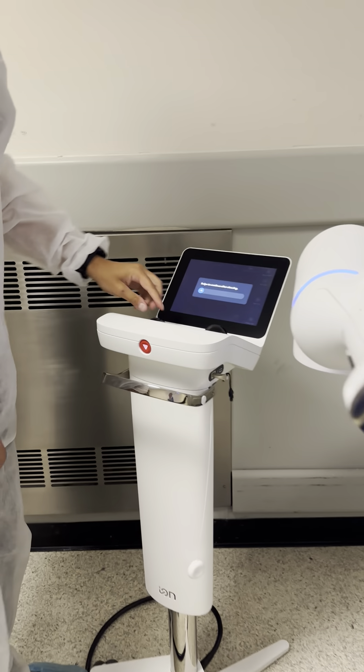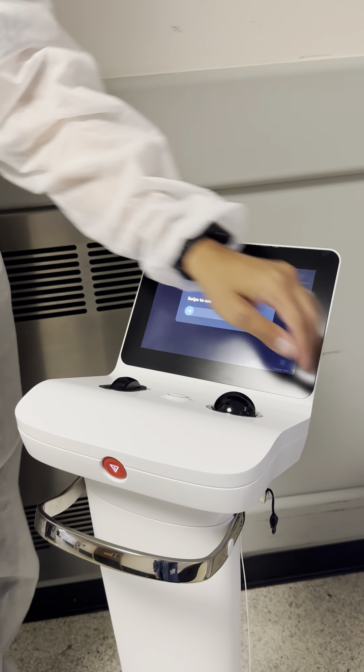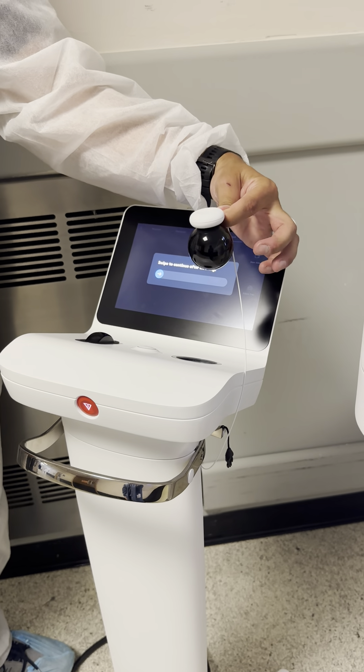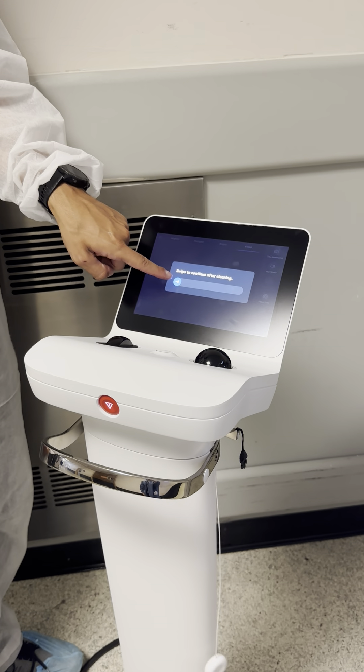You can also remove the scroll wheel like that — clean it and clean the basin. And you can remove the ball with the magnet attached to the controller right here; it comes up like that. Once you're done cleaning everything, you'll swipe, finish cleaning.